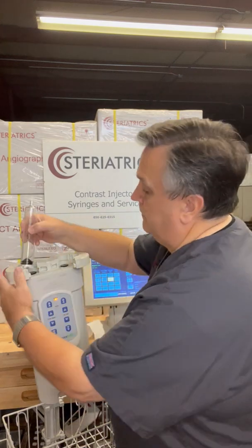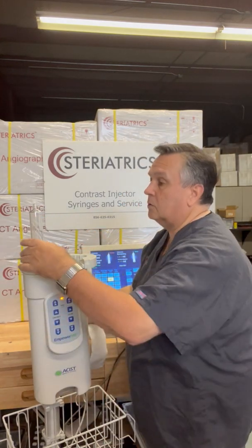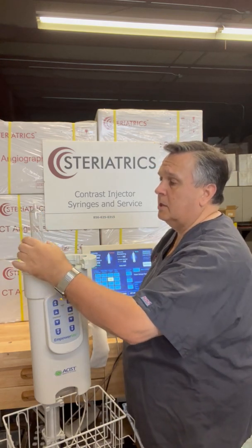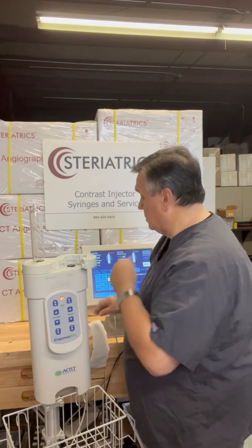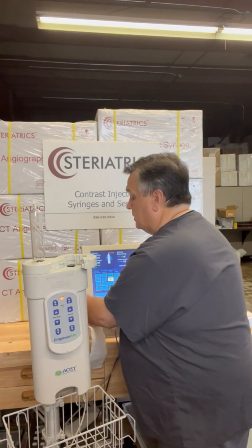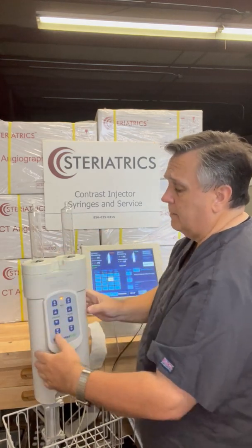I need two hands for this. We just get them in there and close the clamshell doors. You'll notice there's actually indexing on both sides of the syringe, so you just line that up. It's nice that you can turn the syringe while it's in the clamshell and turn it to your visualization of that indexing. Do the same thing on the other side and close them up.